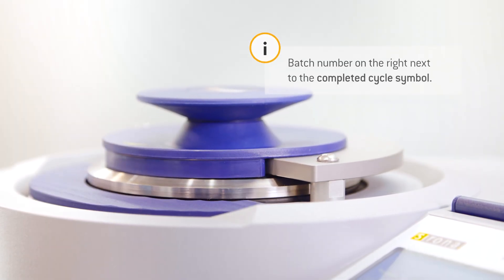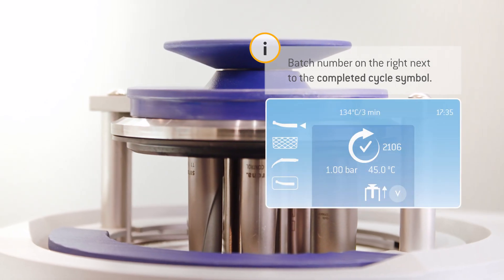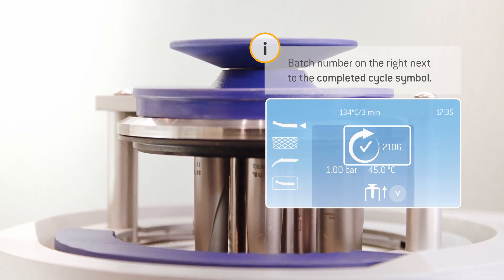When the lid moves halfway out of the chamber, the cycle is complete. Great! The instruments have now been sterilized.